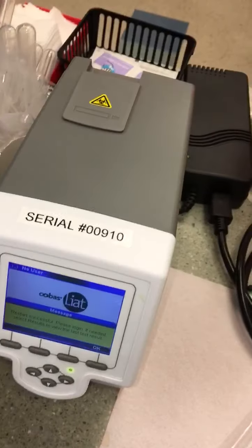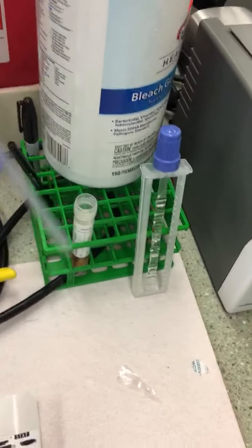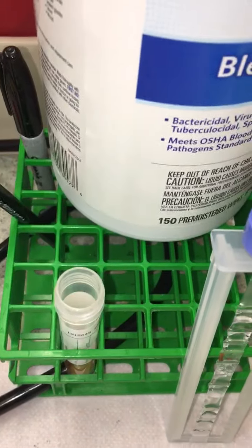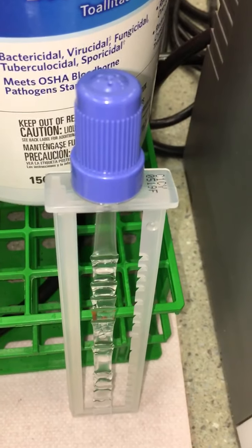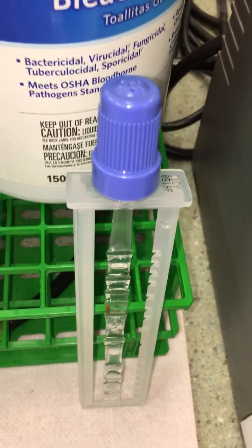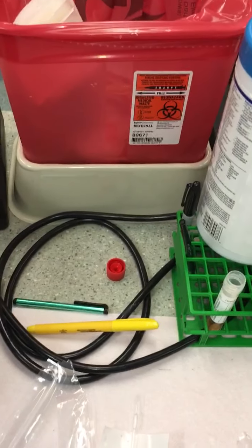with the viral medium. Like I said in the previous video, which was video 1, which I highly recommend you watch first. These are the supplies you will need for the testing. Here we have a pipette that is used to aspirate up the transport media with the specimen in it. This is your patient specimen, which I have uncapped for ease because I am only gifted with 2 hands, unfortunately. And this is the actual reagent test cartridge cassette that you will inoculate to be able to test your sample.